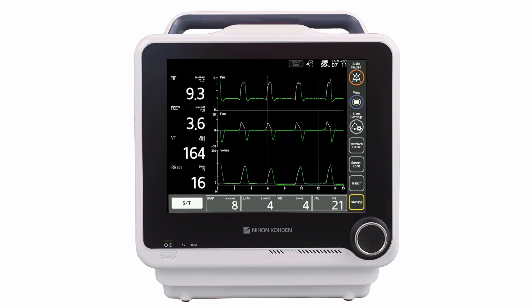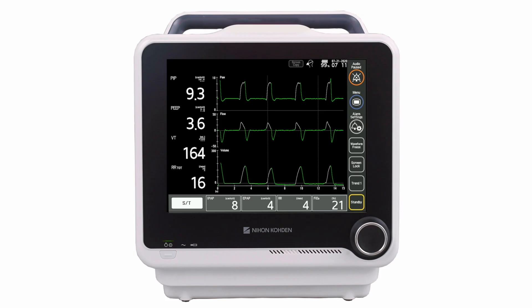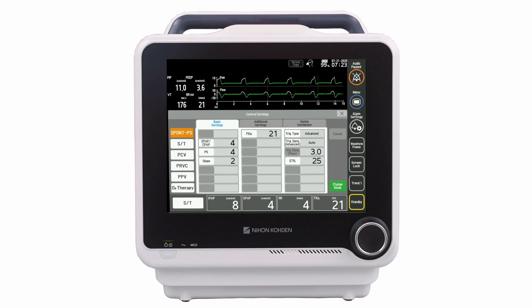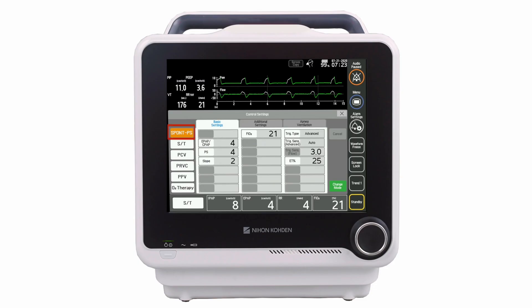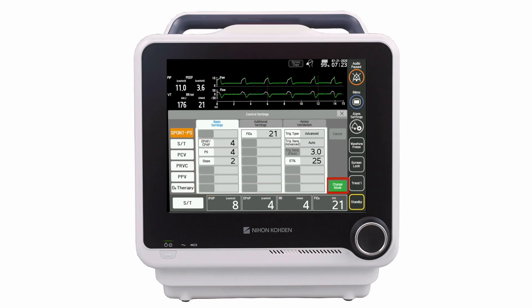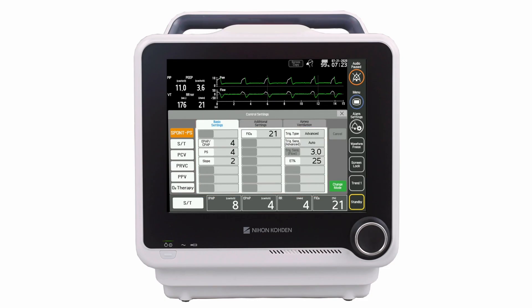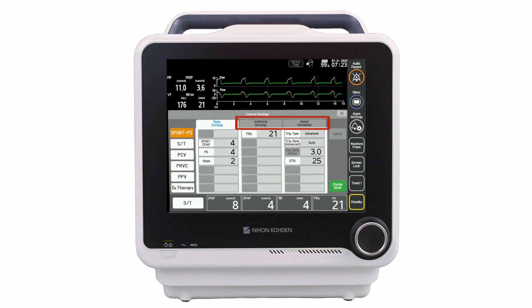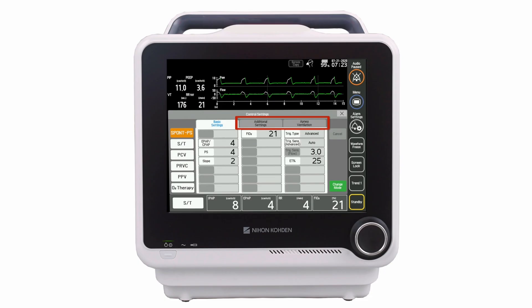To change the ventilation mode or access additional control settings, touch the mode button. When changing ventilation mode, the clinician selects the new mode, presets the settings for the new mode, then touches the change mode button to confirm the start of the new mode. From this window, clinicians can also access additional ventilation controls by selecting the additional settings tab or tabs that are available.